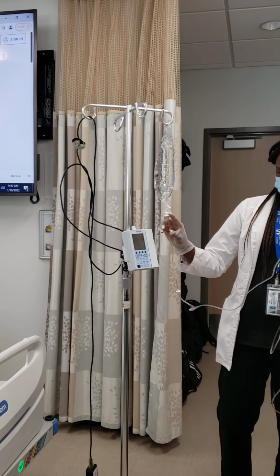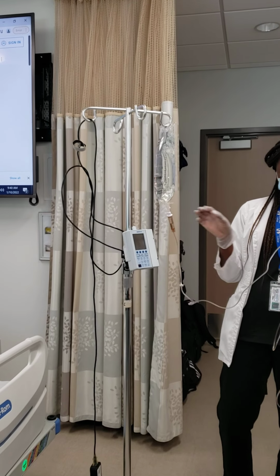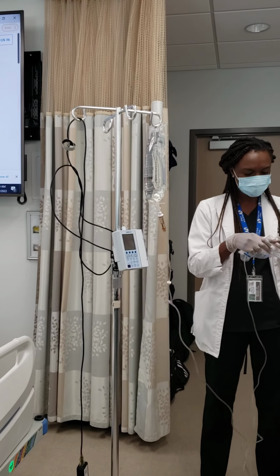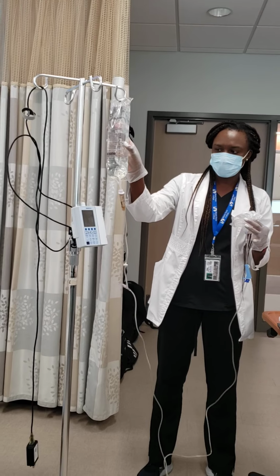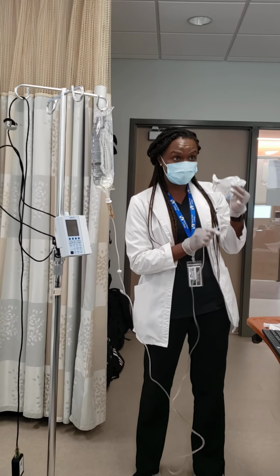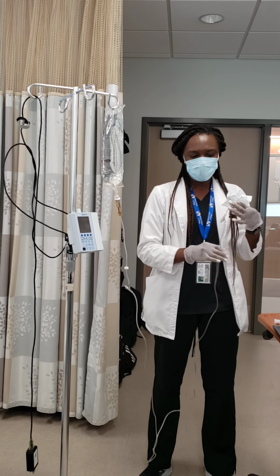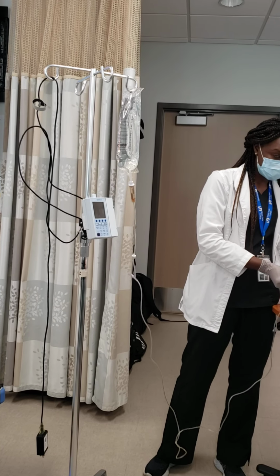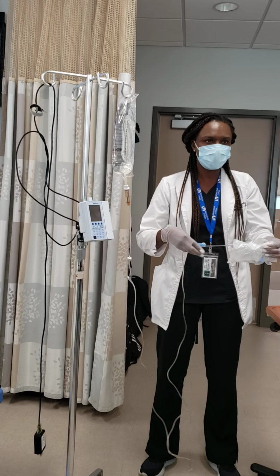The chamber is already filled to the half, so that's fine. You don't have to press it anymore. So before you spike it, you need to clamp it. Clamp it. Yeah. So you hang your bag, you take out the line, you clamp it, and then you spike it. Okay. Once you do that, you can if you want to, you can take off the tip or you can leave it. I like to leave it on. It's more protection, right? It doesn't hurt.